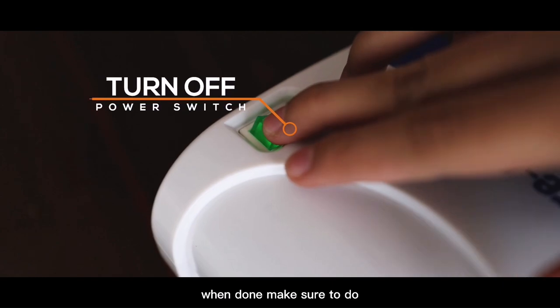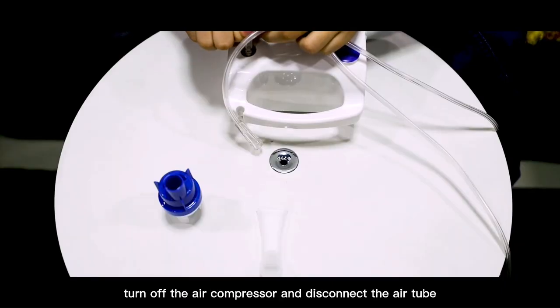When done, make sure to turn off the air compressor and disconnect the air tube.